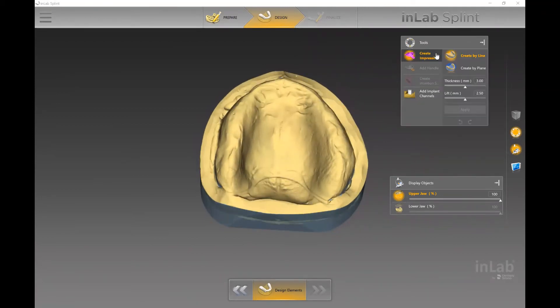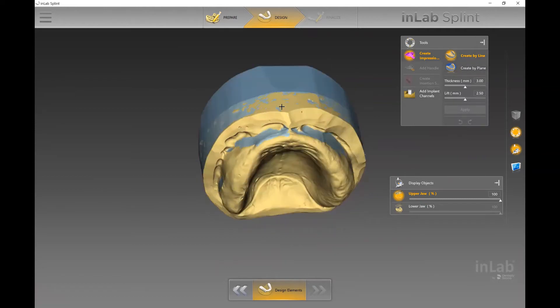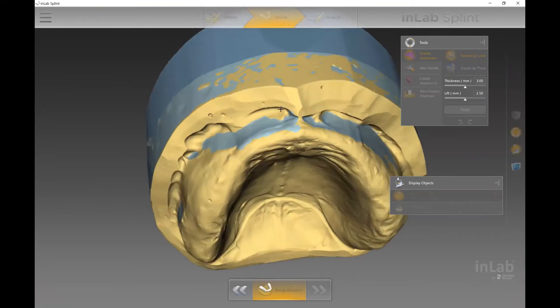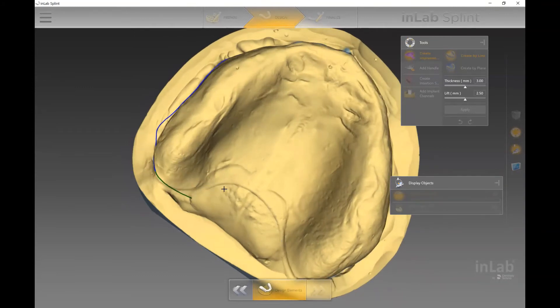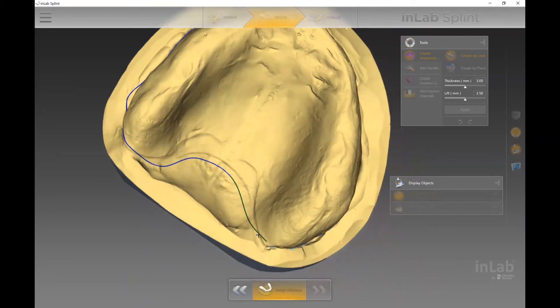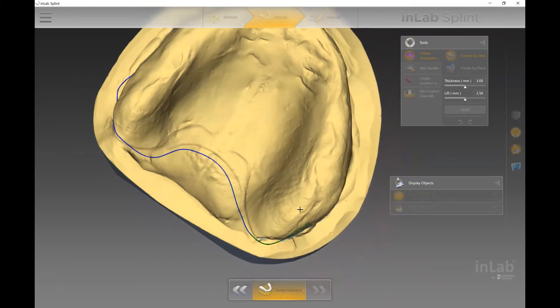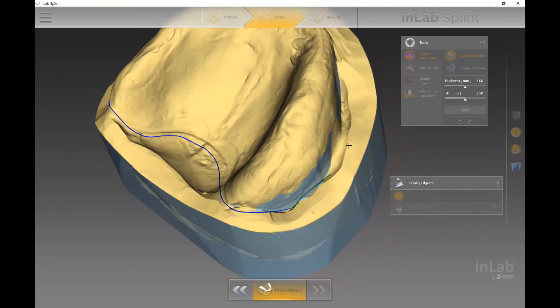When we come into the design element, if this is an implant-supported case, I can add implant channels where I can determine the diameter and height of the channel, and make it a closed or open tray. When defining the borders for the impression tray, you have either 'Create by Line' or 'Create by Plane.' I personally prefer 'Create by Line' because with a custom tray the purpose is to be custom to the patient's mouth — you have a lot more control over the initial border. It is ultimately up to operator preference.